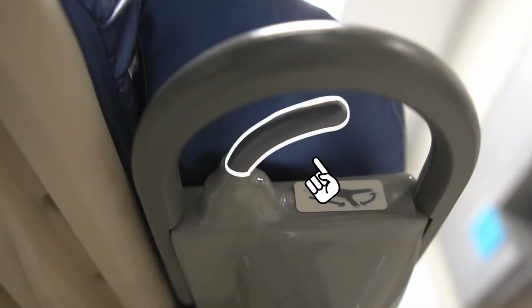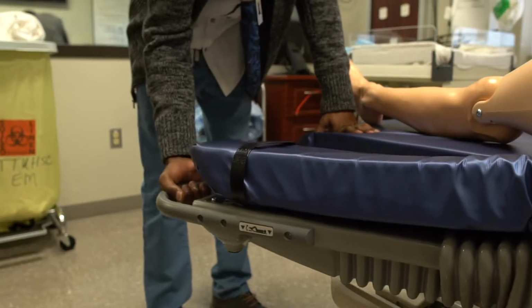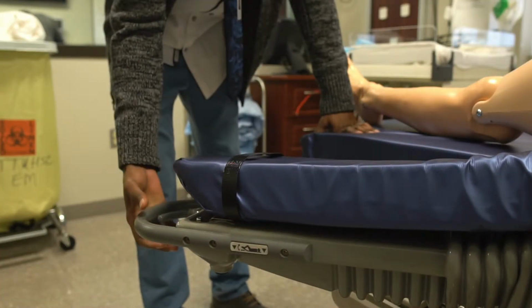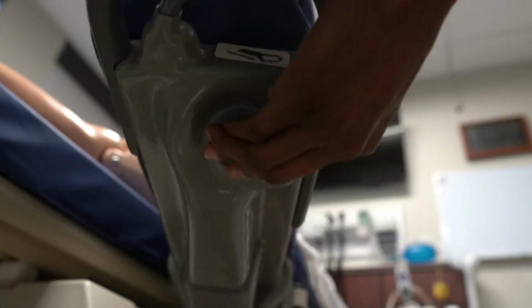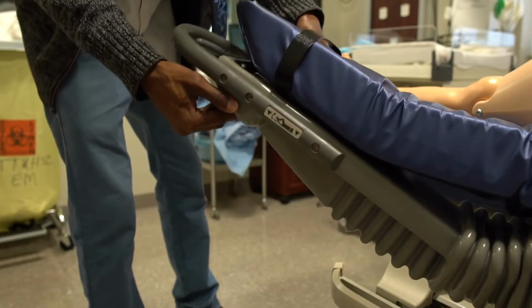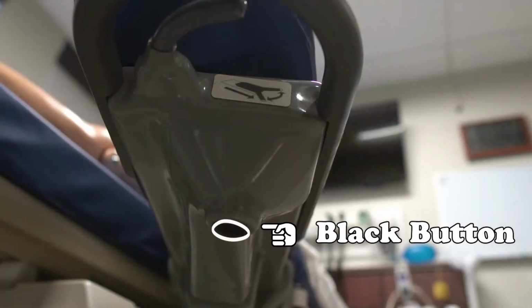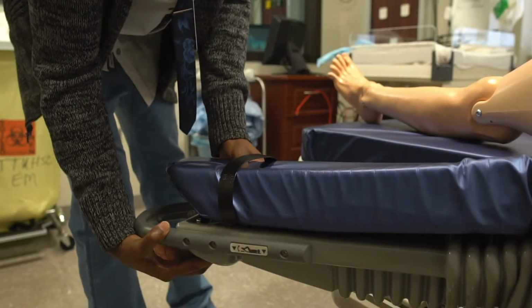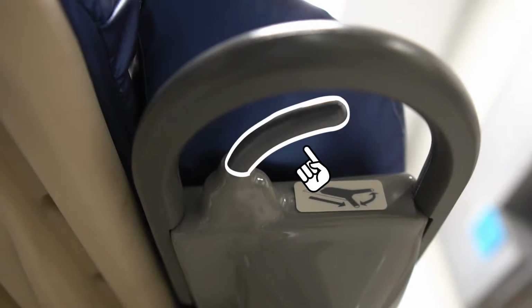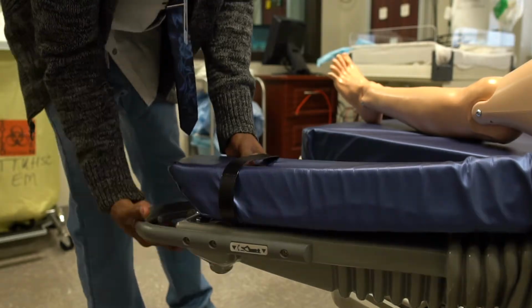To use it, just squeeze and hold this gray handle and push it outward towards the desired location. And to raise it, you will need to press and hold the black button as you lift the foot support to an applicable height. And to put it back, press and hold the black button while you lower the foot support. Then squeeze and hold the gray handle as you move it towards the outside a little bit before bringing it into its original position.